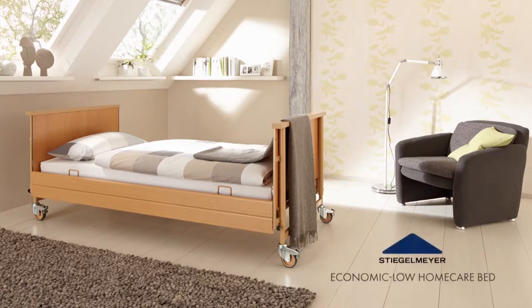This instructional video offers assembly directions for the economic low home care bed that is shipped disassembled on a storage aid.